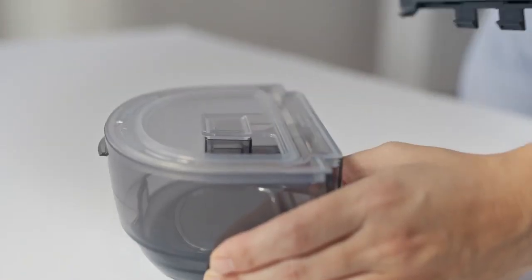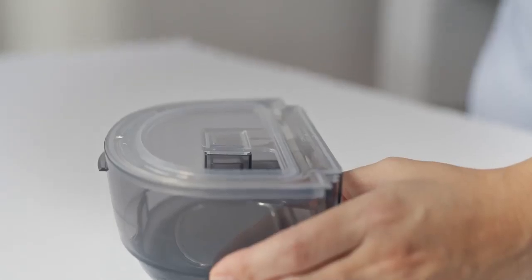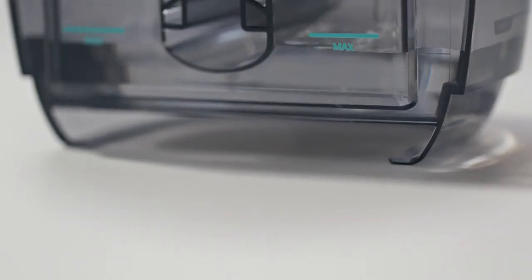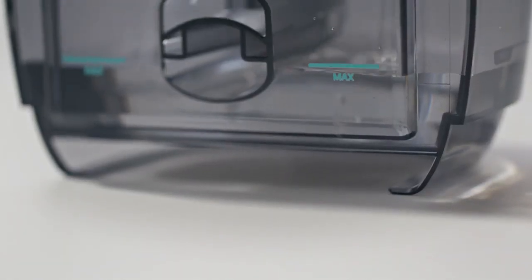Lift the latch and pull up to remove the lid. Add distilled water no higher than the maximum fill line.